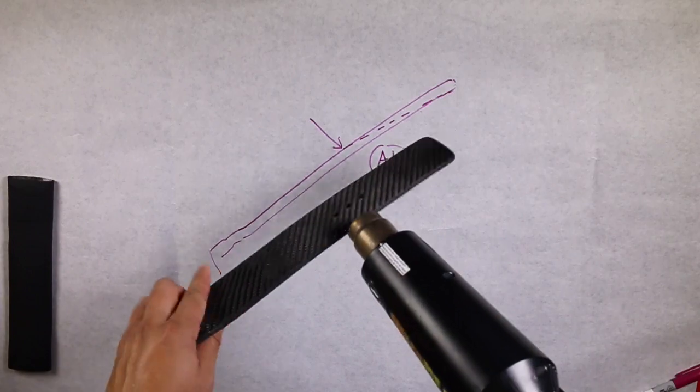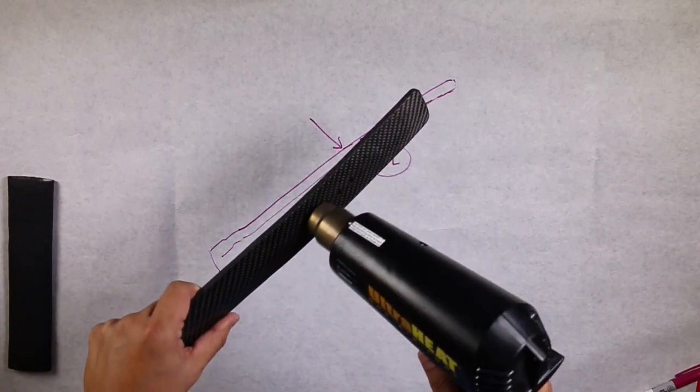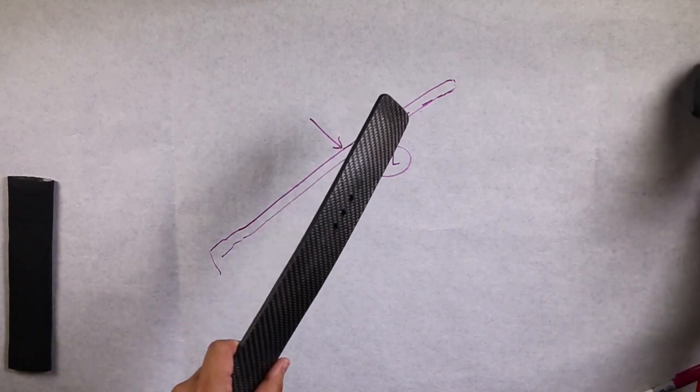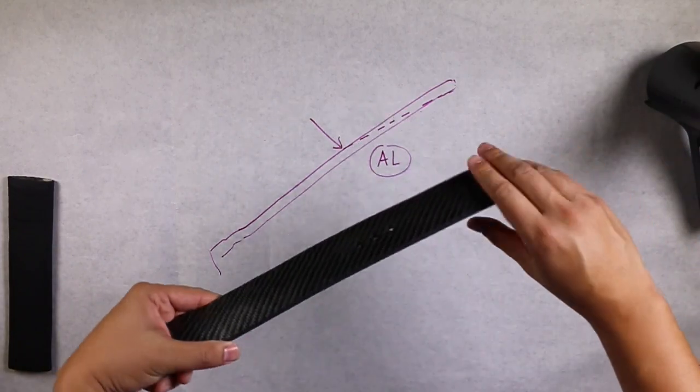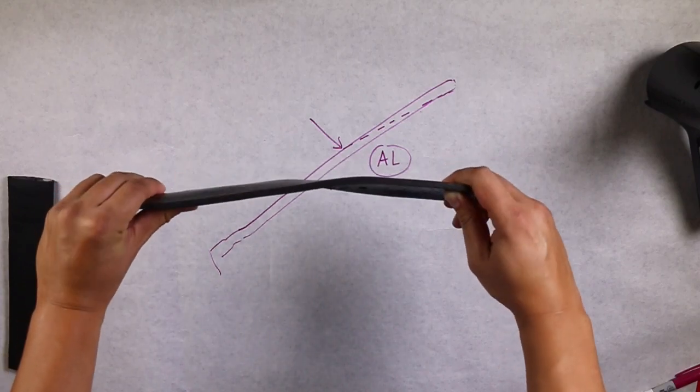Alternate heating both the inside and outside surfaces of the strut. Be sure to heat the strut thoroughly through all layers until twisting and contouring are pliable.